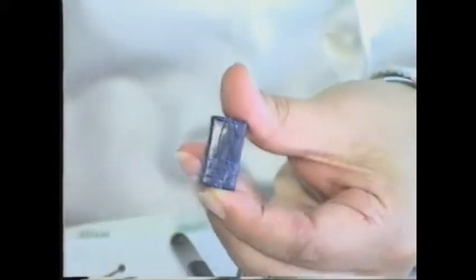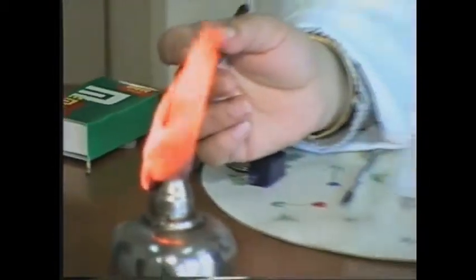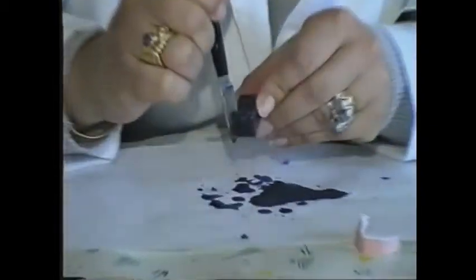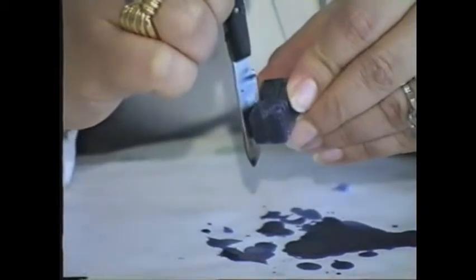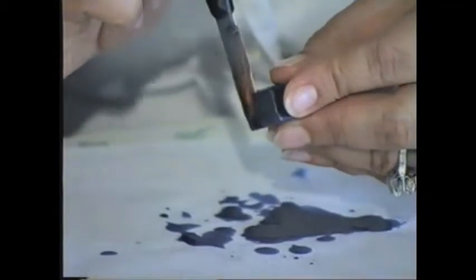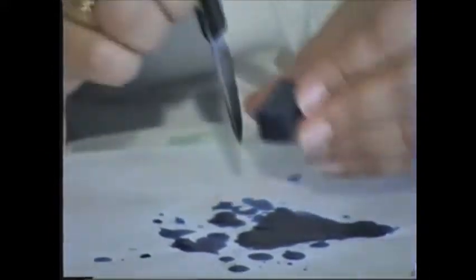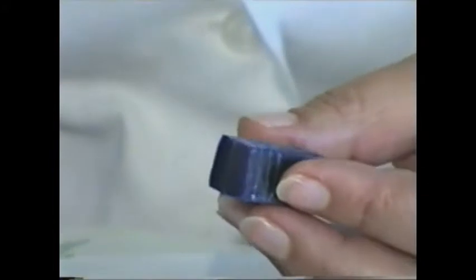Now I'm going to start carving. From the cervical line till you reach the outline of the tooth, leave about 1 millimeter all around the borders. The surface should be smooth. Always I'm looking to the distal and the mesial sides when I am carving.